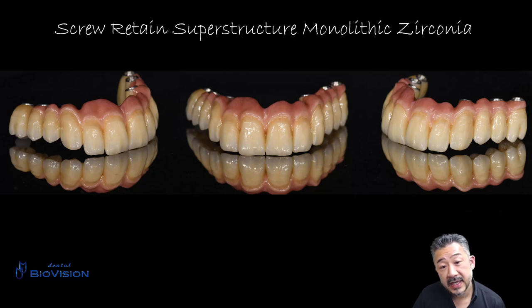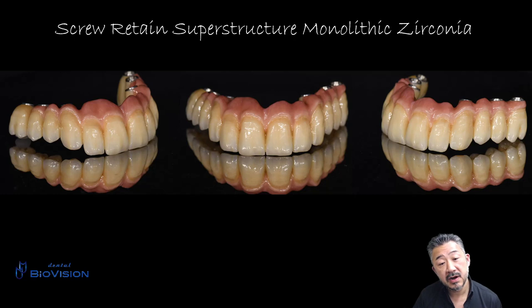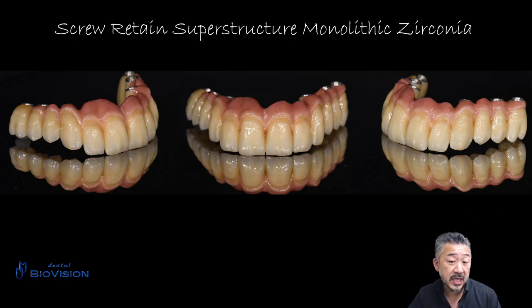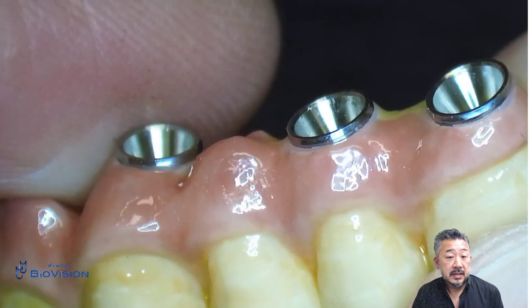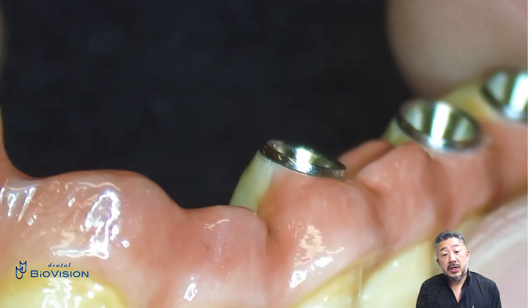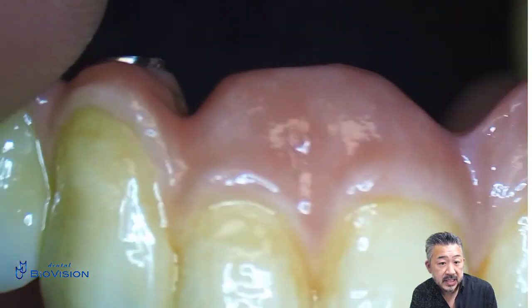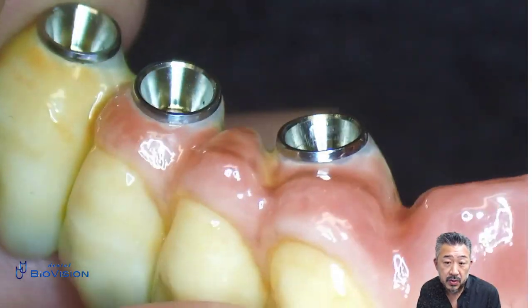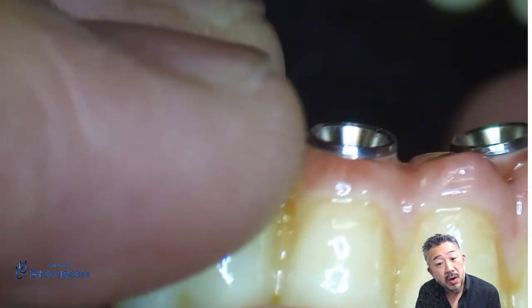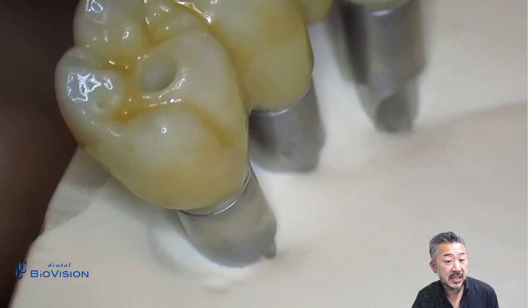After sintering is completed, cement the frame and the titanium link. The crown part uses warm-colored and cold-colored paste to create a natural appearance. The gingiva is done in gradation color to create a more natural look. On the completed superstructure you can see the zirconia frame and the titanium link seated without any gaps — all six locations have a similar fit, and it also fits nicely with the index model.